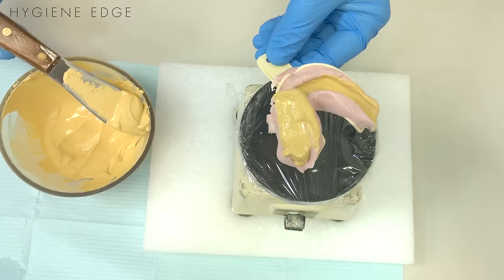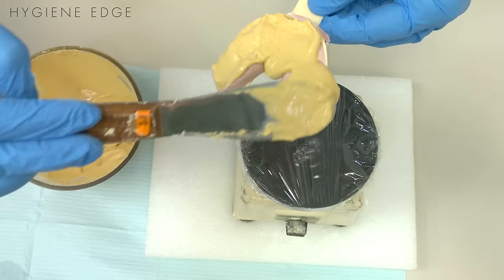After all the teeth are covered, you can add more material and just fill in the rest of your impression.